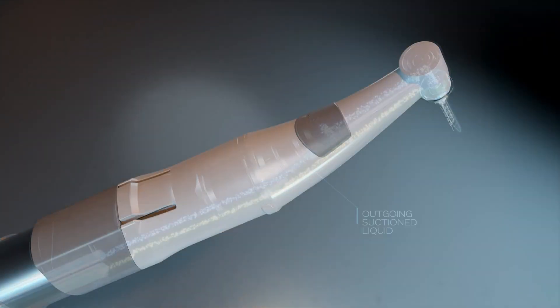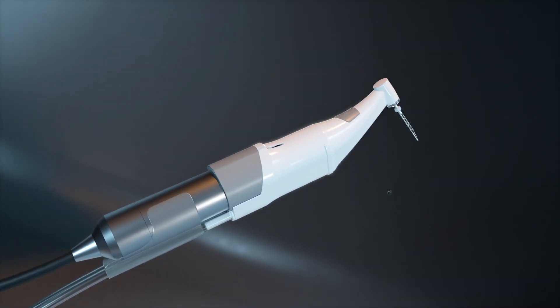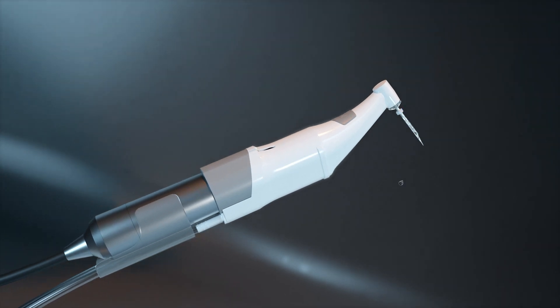The single-use handpiece provides unrivaled infection control and obviates the need for tedious maintenance procedures.